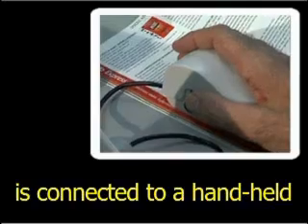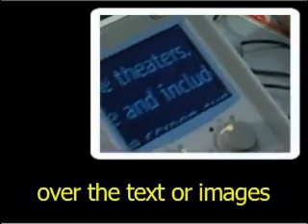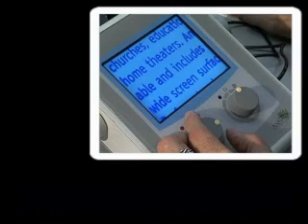This self-contained display is connected to a handheld camera that can be placed over the text or images that the viewer wishes to view. The display unit, separate from the handheld camera, is box-like, about 5 inches by 7 inches, and features a small screen and two control knobs below.